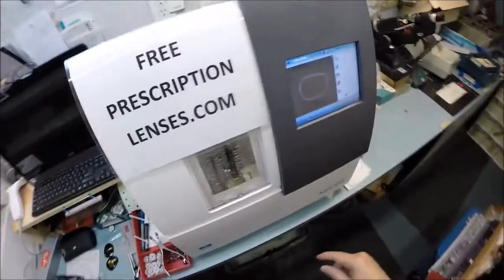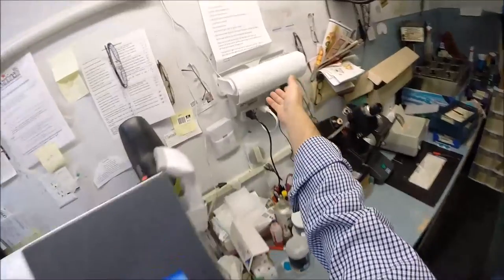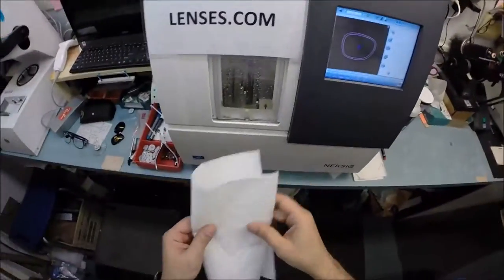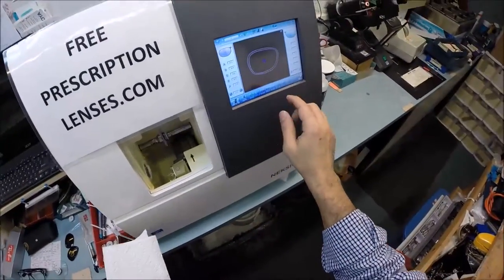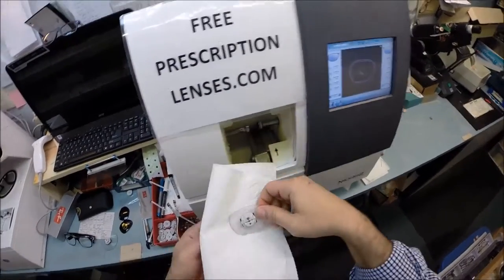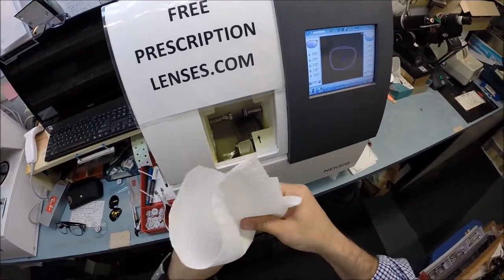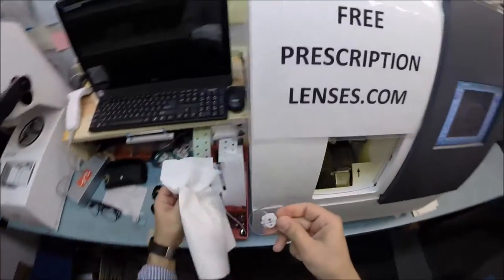You have two add-on features. You have the transition that will turn dark when you go outside. You also have an anti-reflective coating that's gonna eliminate glare when driving at night. Water has just begun spraying on your lens. It does it for the last 20 seconds of the cutting cycle. Now a little arm is gonna come out with a little wheel on it, just sanding down any rough edges that may be left over from the cutting cycle. This is known as the safety bevel.